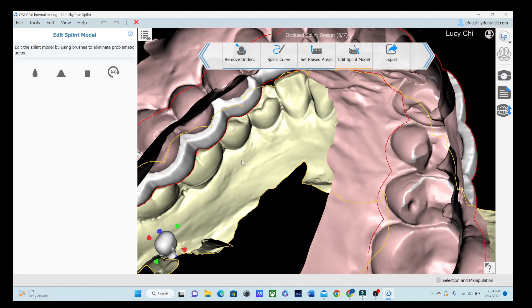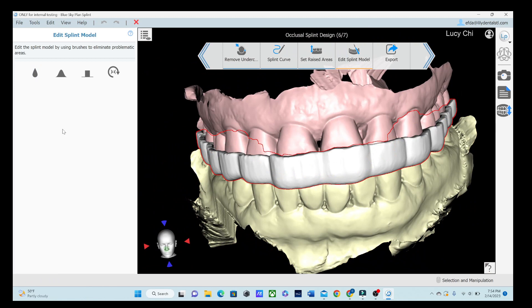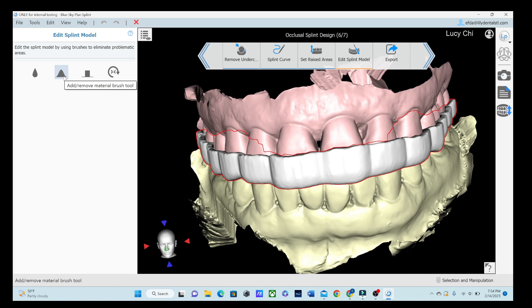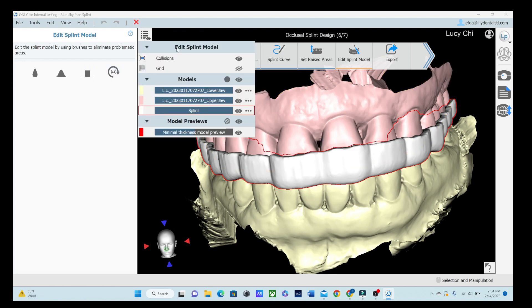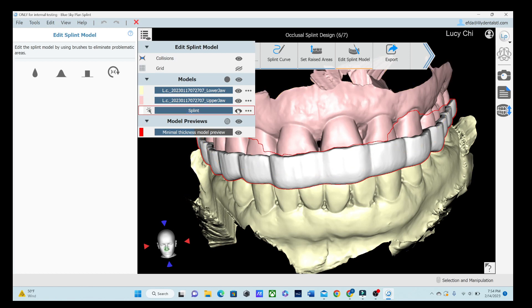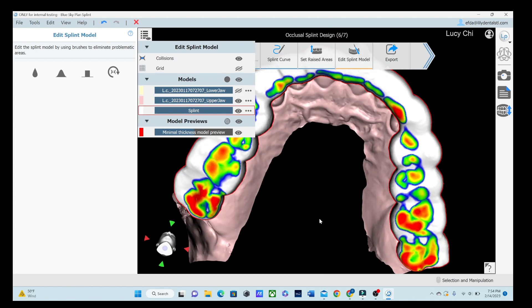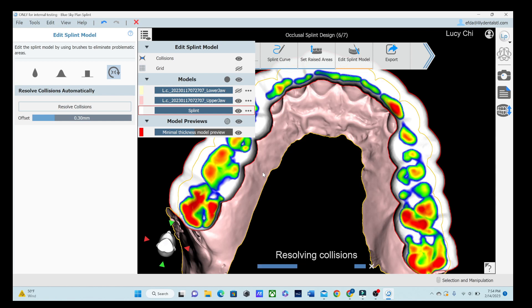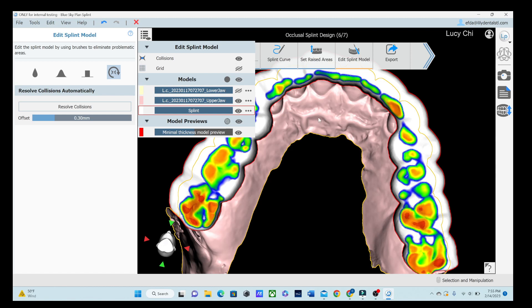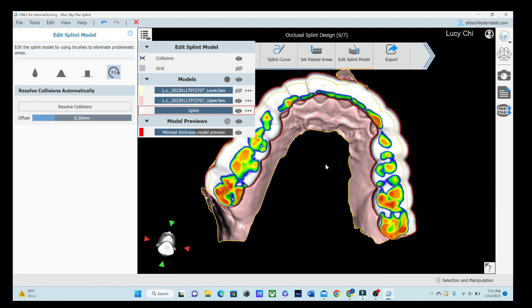Let's go ahead and I'll go through all these tools with you real fast but we are just about done. There's your tool of smoothing and remove material so that'll be shift or control depending on which one you're doing, the Local Deform so if you want to move some material around, and then we have Automatic Collisions Removal Tool which is what we need to be looking at. So we have the collisions on and then let's go ahead and turn off that bottom jaw and then we can see it's really heavy in just a few areas so we'll click Remove Collisions. Excuse my runny nose. And then you can see it's nicer now. Less red areas. We are hitting it a little bit heavy in the back but that's obviously to be expected. But more orange and blue all over which I like.